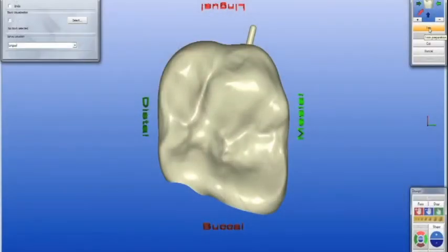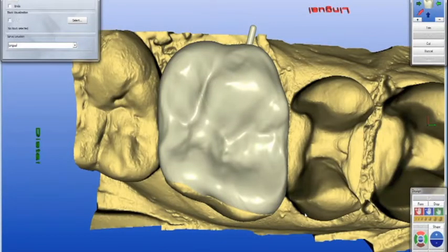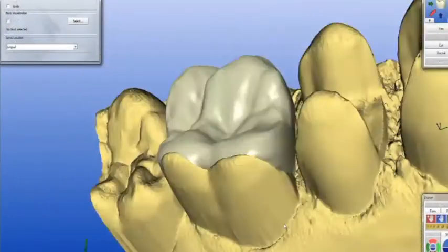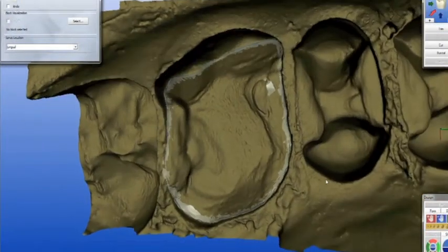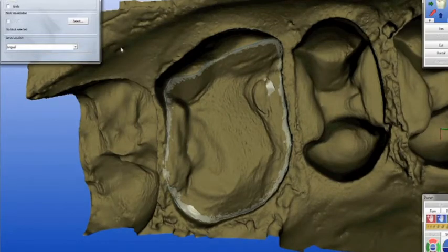You hit the green arrow and you're in your milling preview. I'm going to check several things at this stage before I mill. Ctrl+B is already on, so you go up to trim, double-click trim — that turns back on your virtual die without the blue line. You turn the die over and check your spacer. What you want to do at this time is make sure you see no shine-through of your spacer inside of the margins. If you see a shine-through, that means it's not going to seat all the way.